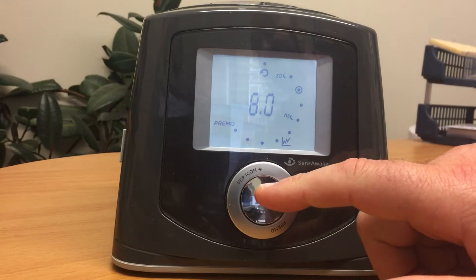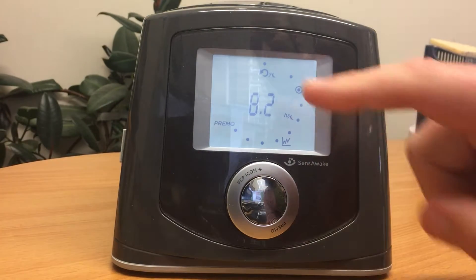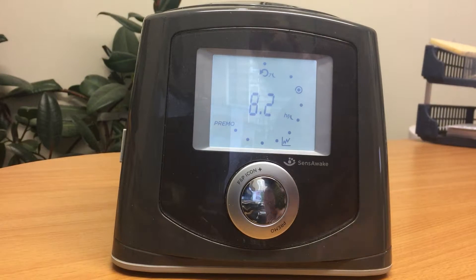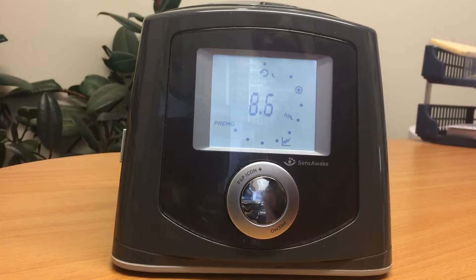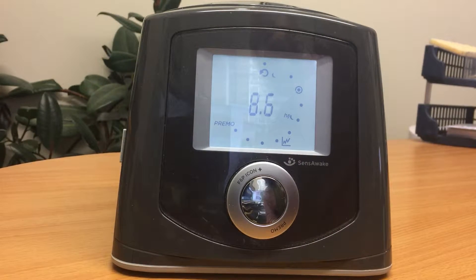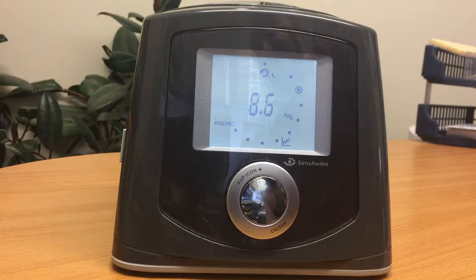If you press the button once, that gives you the average over seven nights. Press the button again and you get a single moon, showing how many hours the machine was used for last night.